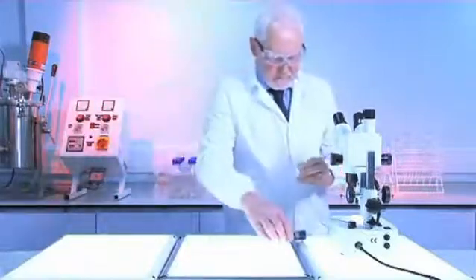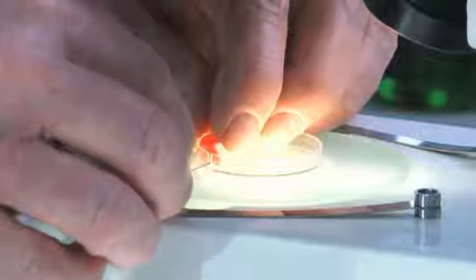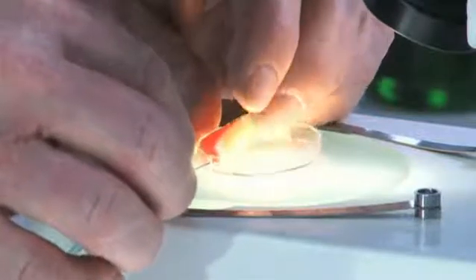Now, we push a syringe through each piece of meat so that the needle rests on the wound surface. Fluid pumped through the needle simulates exudate from a wound.